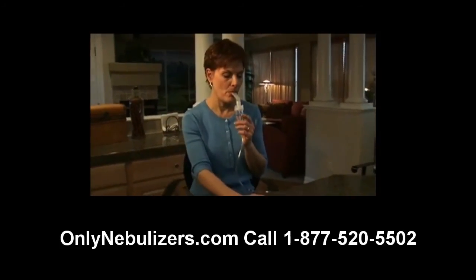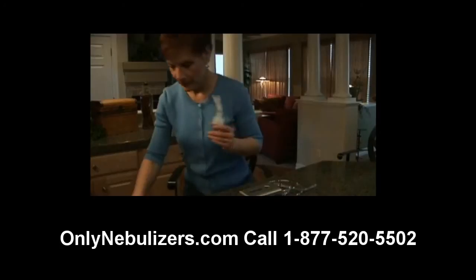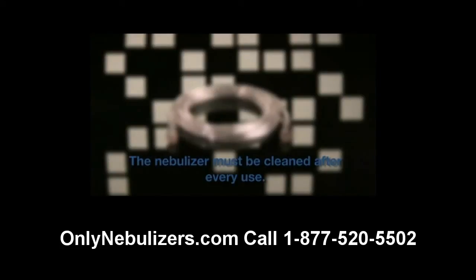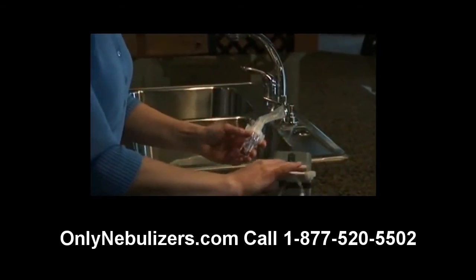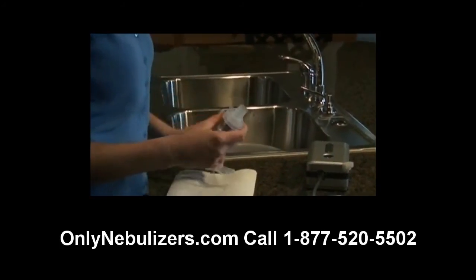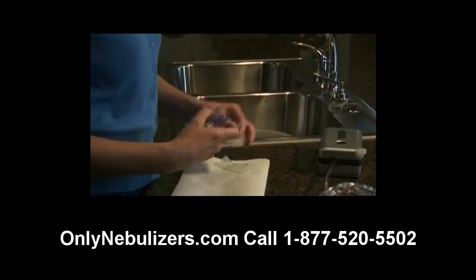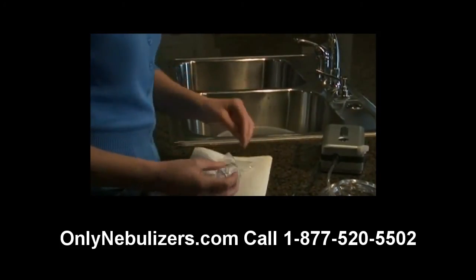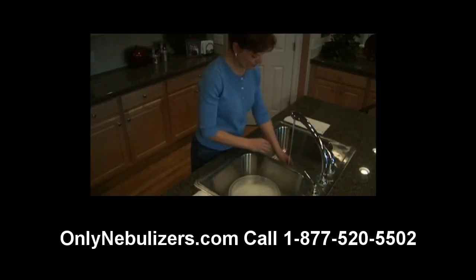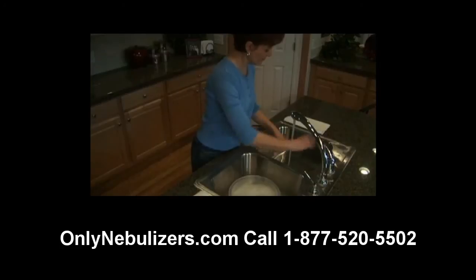When you've completed your treatment, turn off the compressor and unplug the unit from the wall power outlet and power socket on the unit. Without exception, all parts of the nebulizer except for the tubing must be cleaned after every use. The inside of the tubing does not have to be washed because only filtered air passes through it. Start by disconnecting the tubing from the air inlet connector. To disassemble the nebulizer, first remove the mouthpiece from the nebulizer cap by grasping firmly and pulling straight up — do not twist the mouthpiece. Next, remove the nebulizer cap by turning counterclockwise, then remove the baffle from the medicine cup by lifting straight up. Now you're ready to wash all parts, except the tubing, in a solution of hot water and dishwashing detergent. Then rinse all the pieces under hot tap water for 30 seconds and allow to air dry.